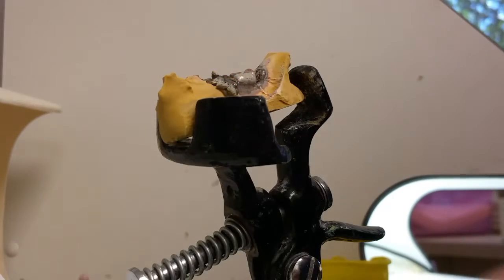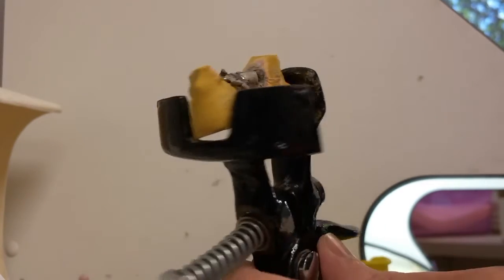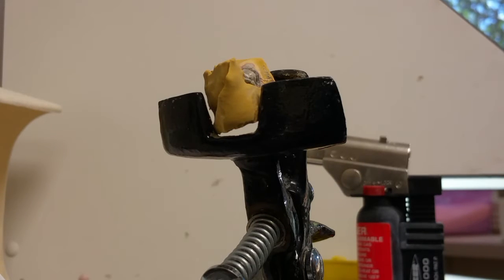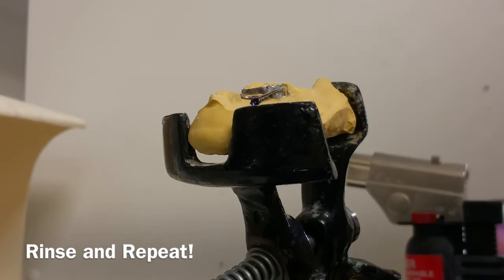I'm just heating all the elements that I want solder on. The solder will flow to the heat. If you want it to move, move the heat to where you want it to move to. And then go back and forth. That's it.